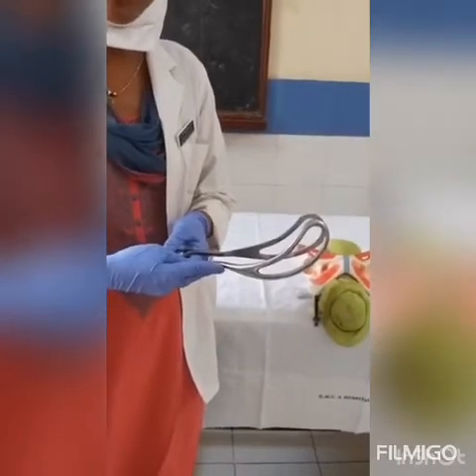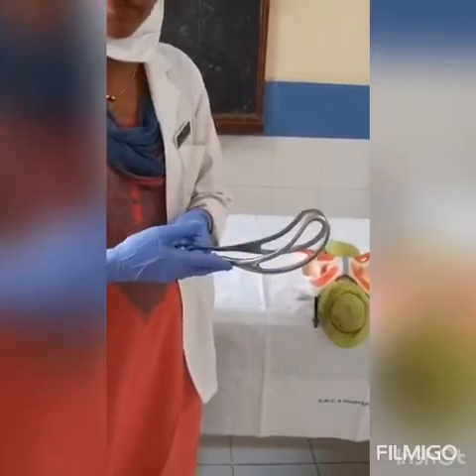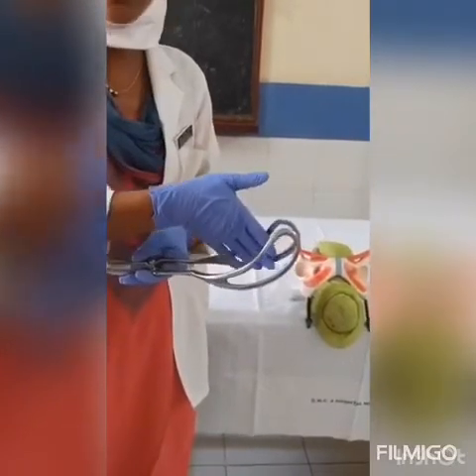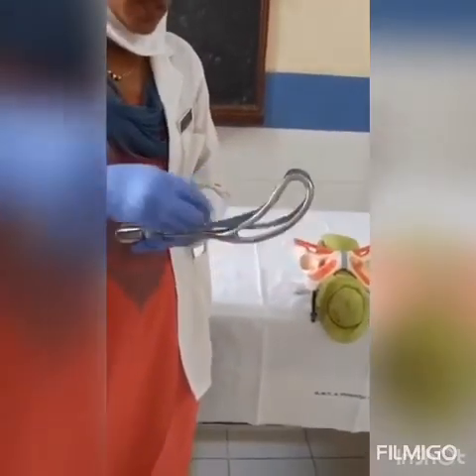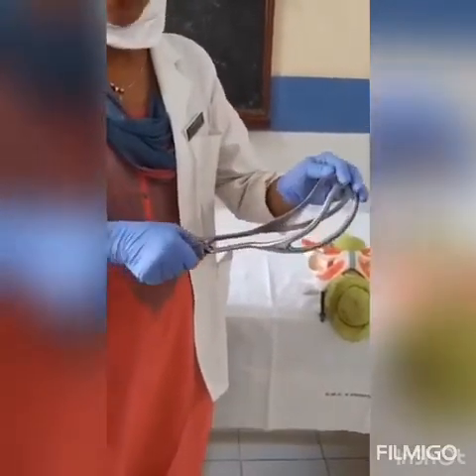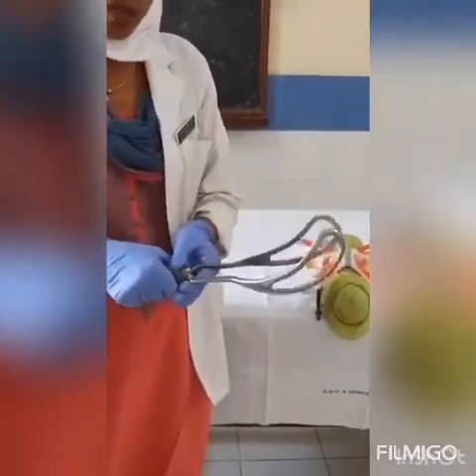Now let us know what are the curves of the forceps — many people have confusion regarding this. The cephalic curve is the one in which the fetal head snugly fits. The second is the pelvic curve, which lies around the birth channel. So these are the various parts of the forceps.